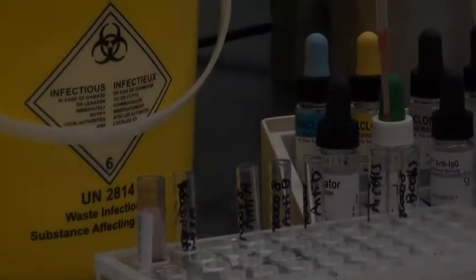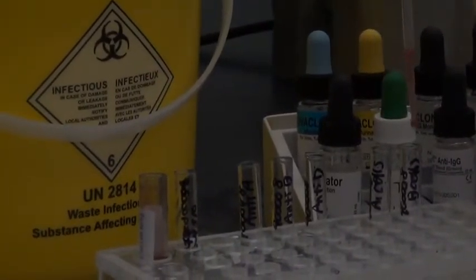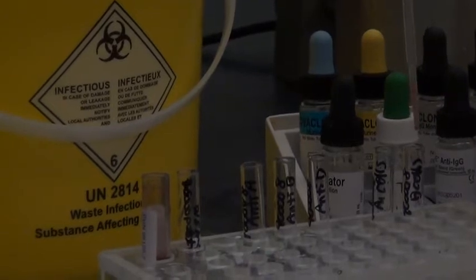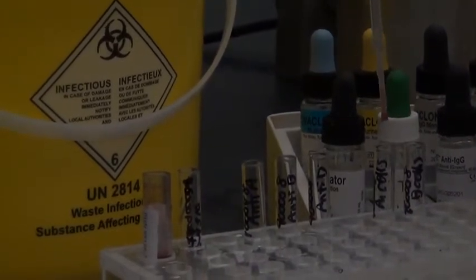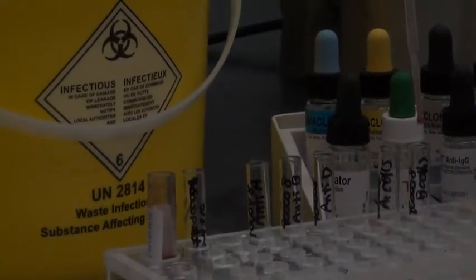and two drops into each of the reverse groupings. Notice that my pipette's being held vertically, and my pipette tip is above the tubes, not down close to the tubes.